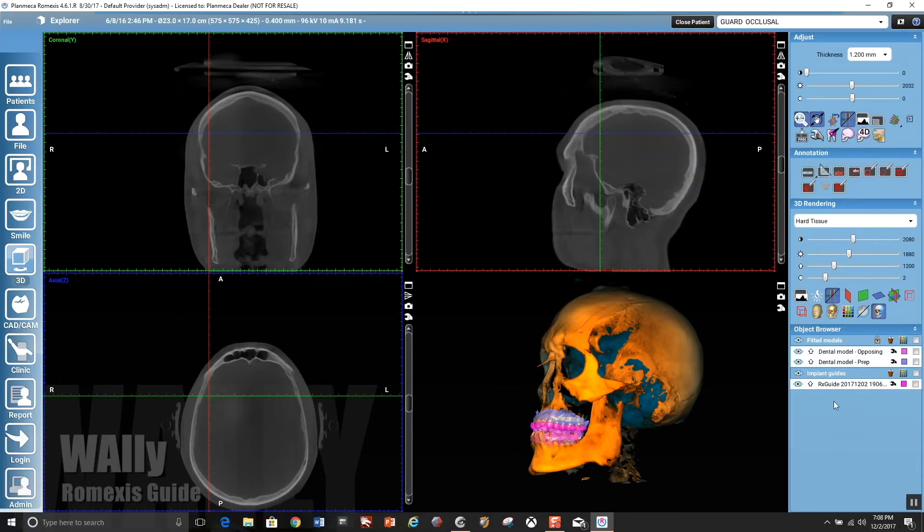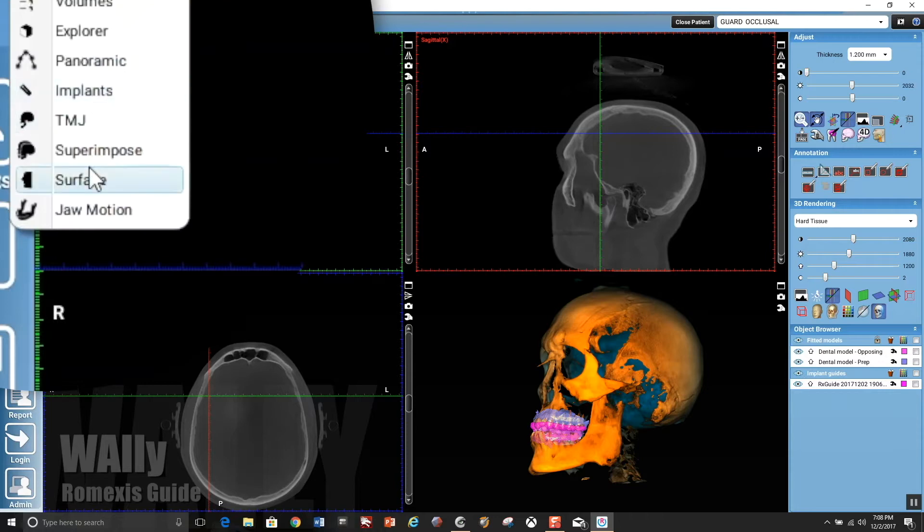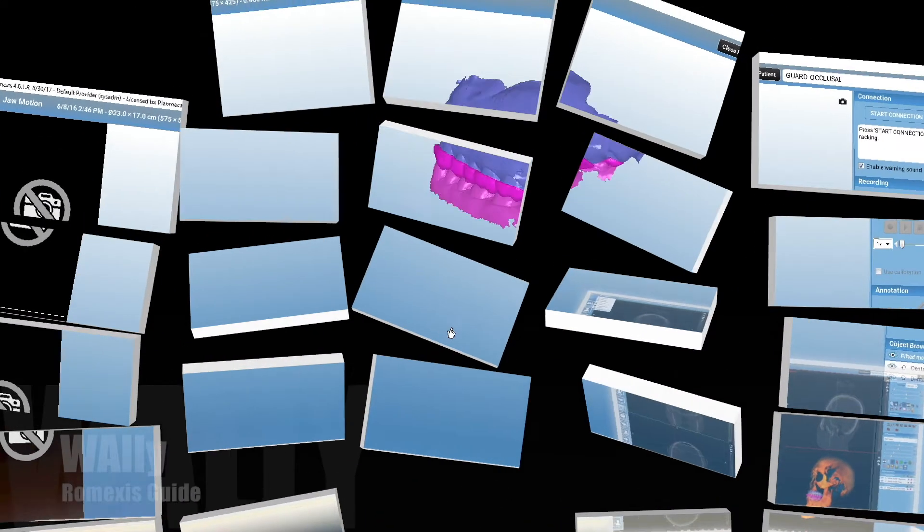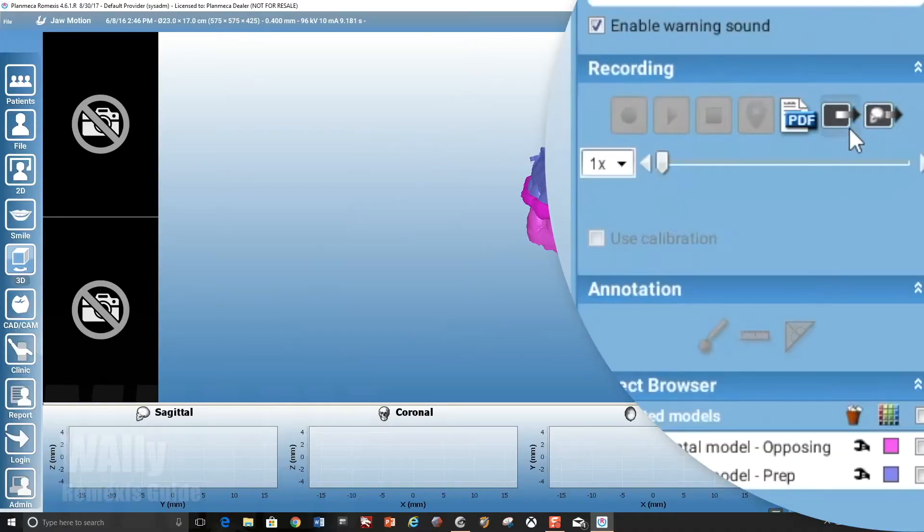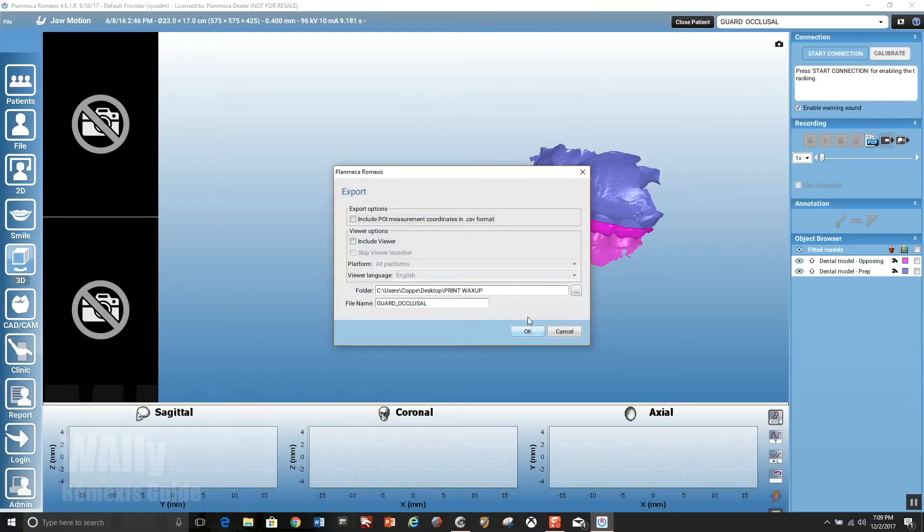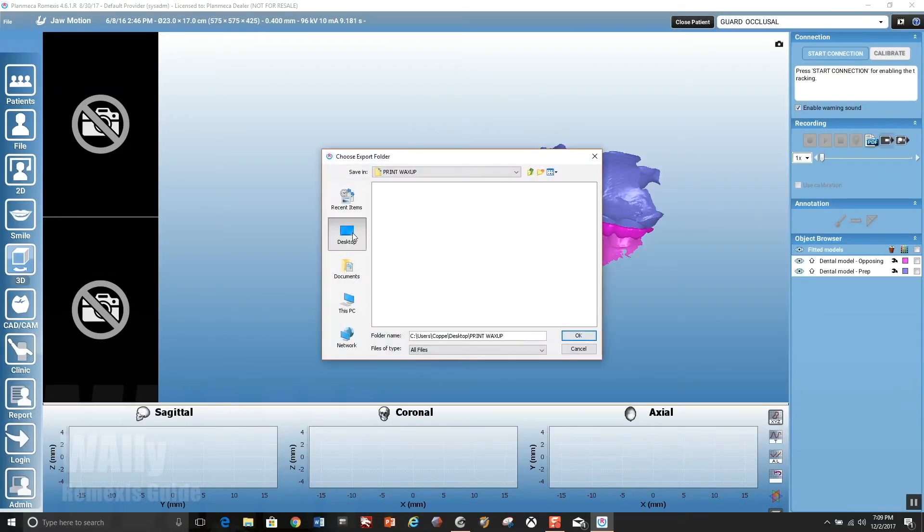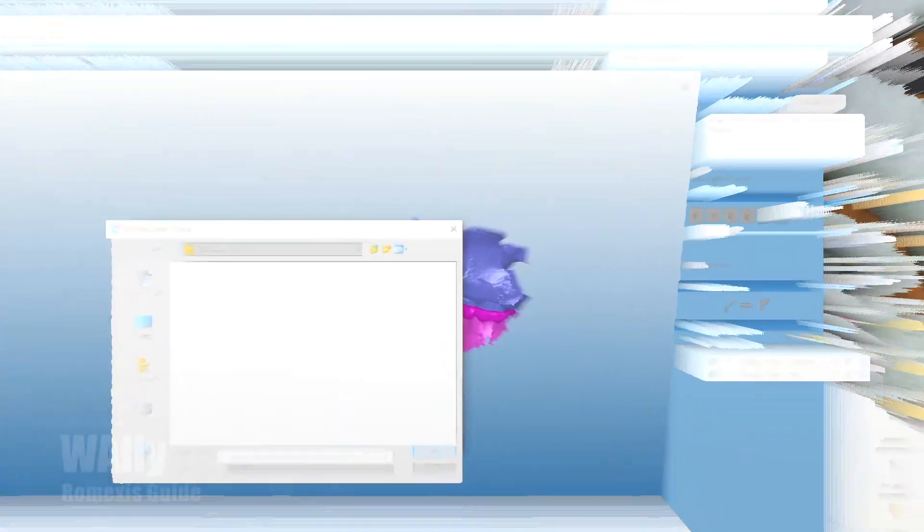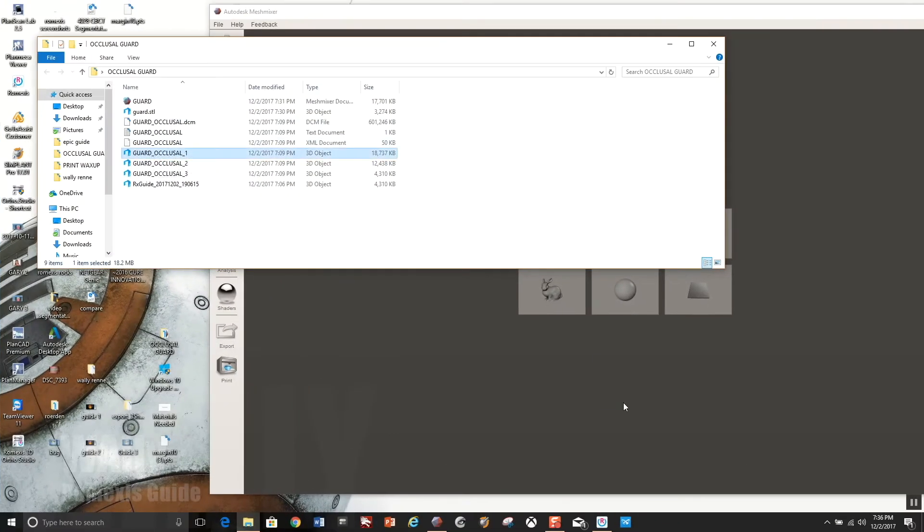Really really easy here, guys. Now this is the tricky part. You have to go into JAW Motion. Don't freak out if you don't have this module. They're going to allow you to export everything from the Explorer window in the future. But in the meantime, you go to JAW Motion and you are able to export everything as rendered and in the proper STL orientations.